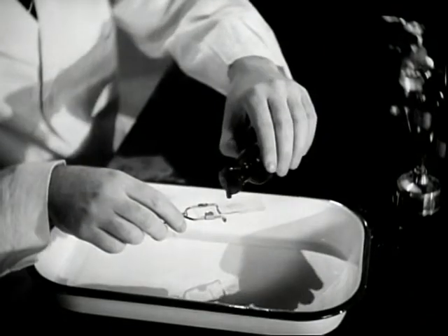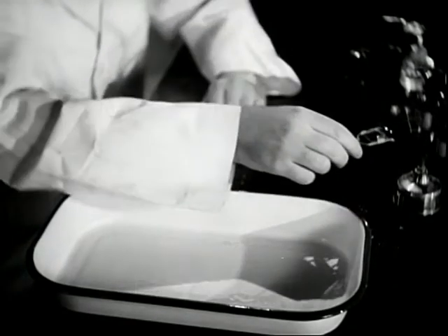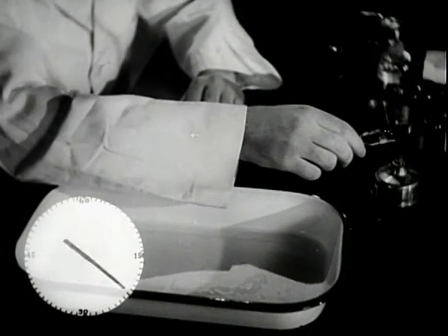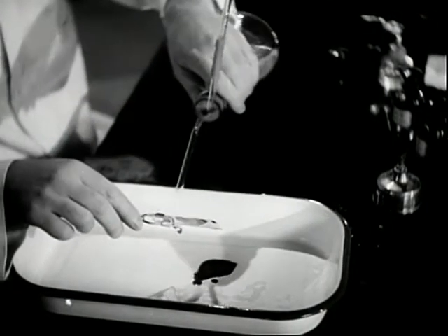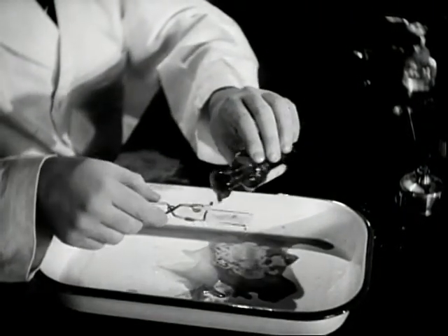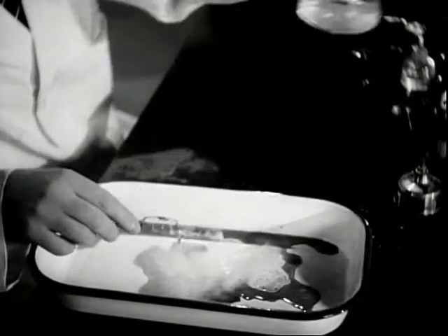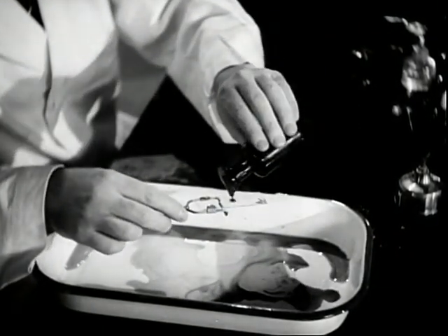The slide is flooded with carbolfuchsin and heated to steaming but not to boiling. This heating must be continued for three or four minutes. The stain is poured off and the slide rinsed with water. The stained smear is then decolorized with acid alcohol until no more color appears in the washings. Finally, the specimen is counterstained with methylene blue.